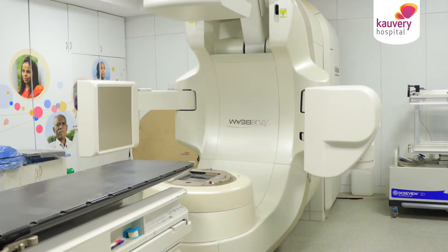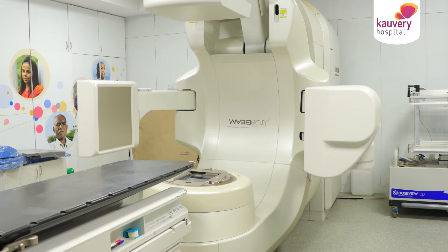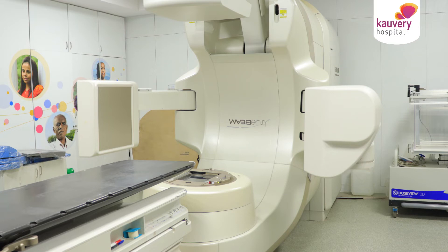There are different techniques to treat cancer using a linear accelerator. One of these techniques is 3D CRT, which is an older technique. The modern techniques are IGRT as well as rapid arc. The advantage of the newer techniques over the older techniques is that we can directly bend or shape the dose according to the tumor outline, which is not possible with the older techniques.